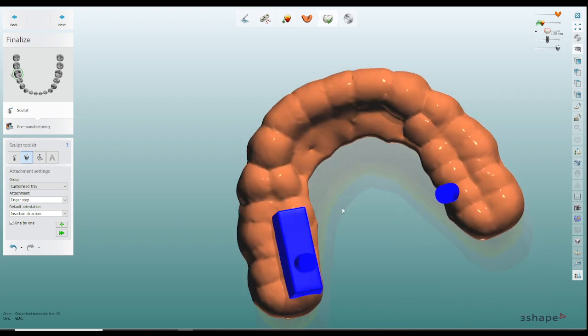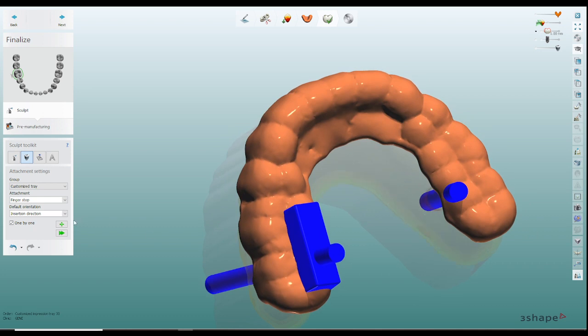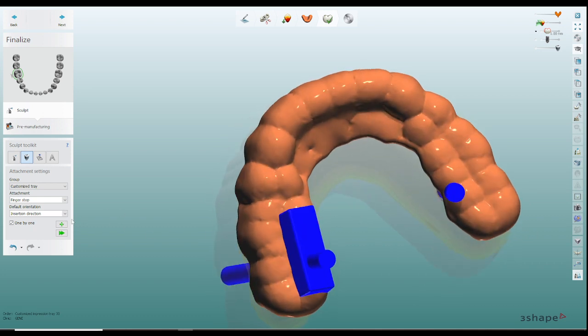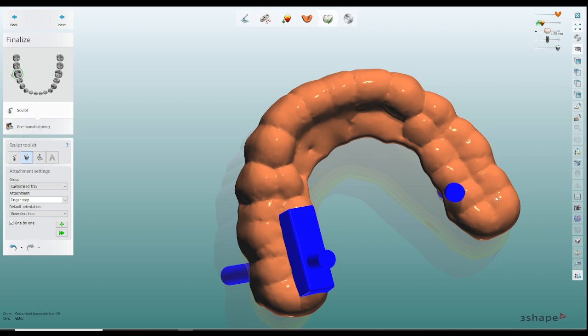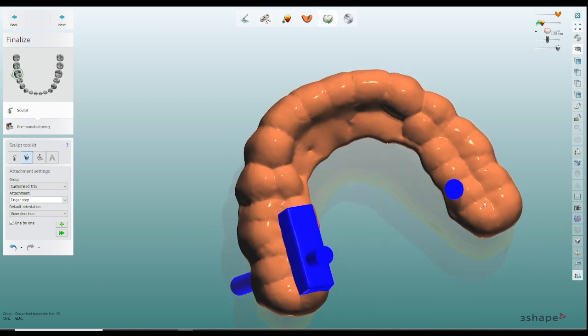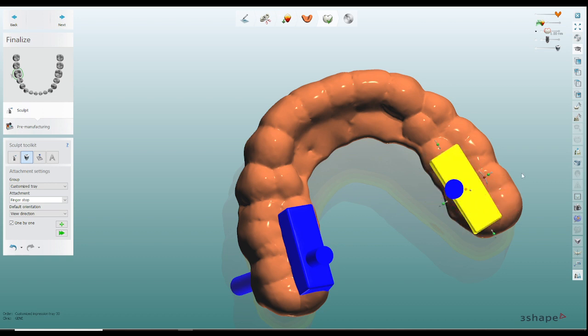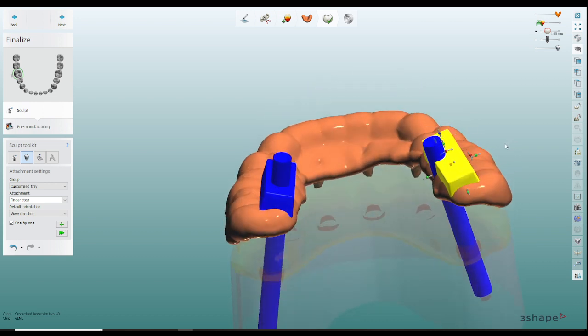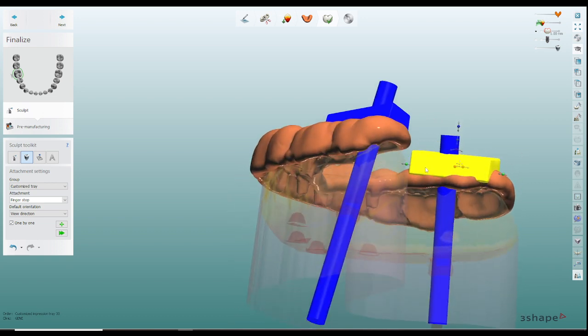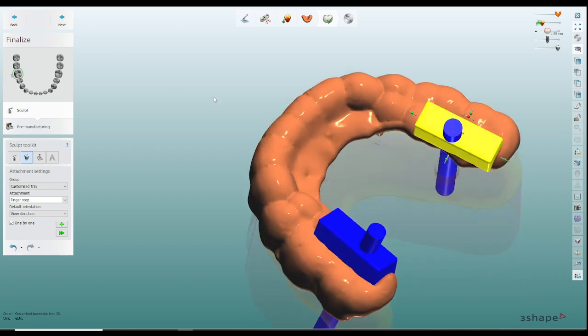So by doing it like this let's add one more on here. Let's do view direction, I'll make it a little bit easier. Rotate this here and put into this area right here, it looks about right, good.